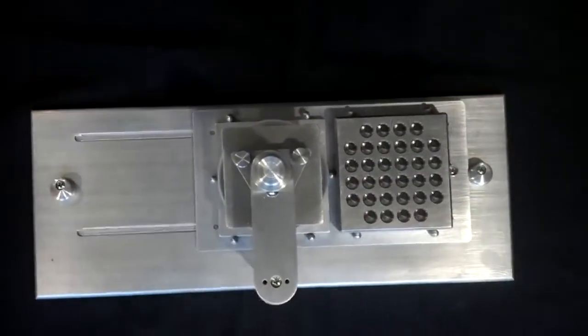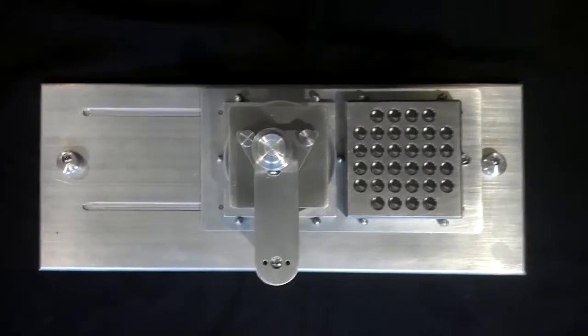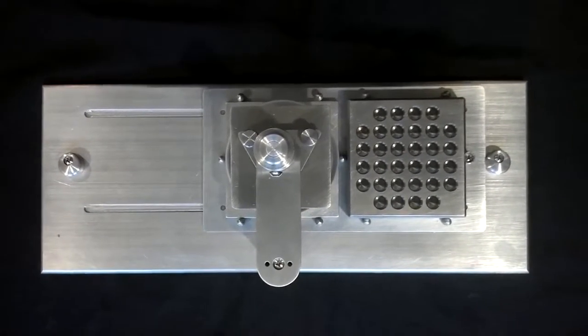This is the STEERS Replicator Multiple Inoculator. This precision instrument is designed to be used in the clinical laboratory setting.